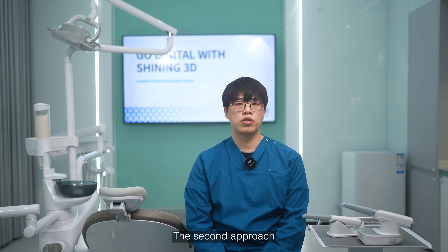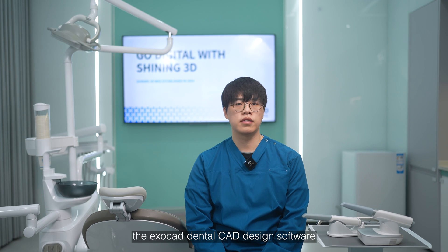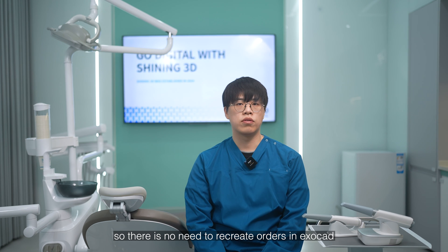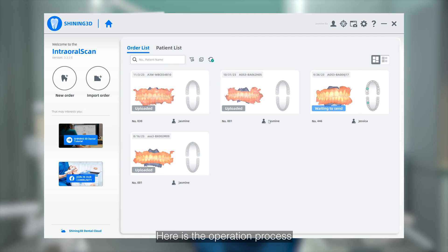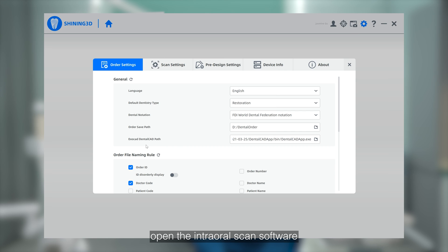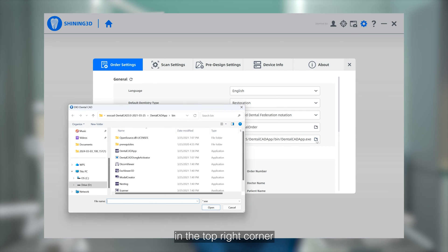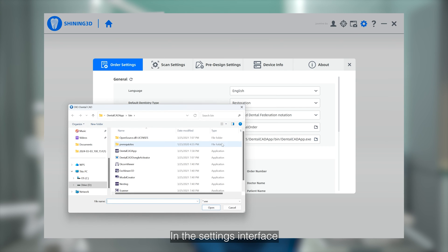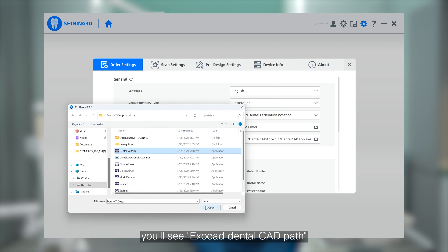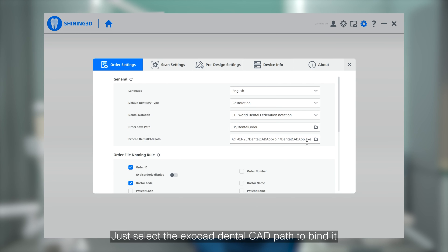The second approach is to directly integrate the ExoCAD Dental CAD design software, so there is no need to recreate orders in ExoCAD. Open the intra-oral scan software and click on the settings in the top right corner. In the settings interface, you will see the ExoCAD Dental CAD path. Just select it to bind.